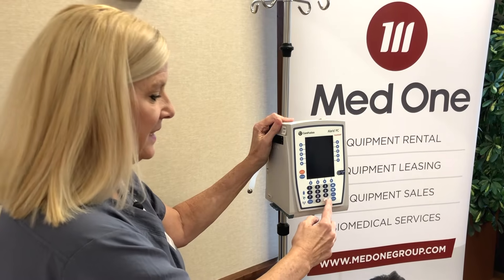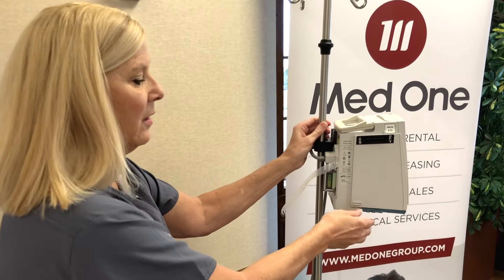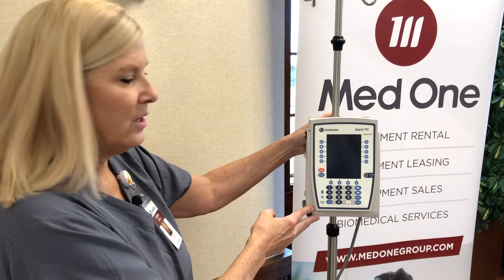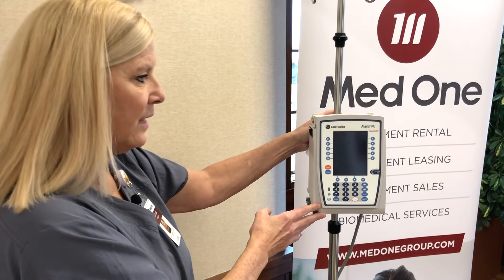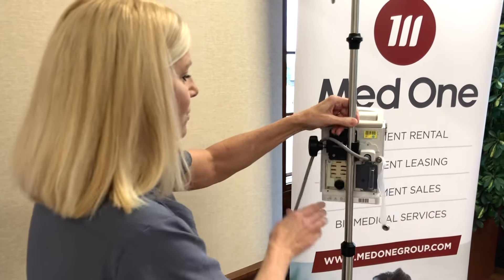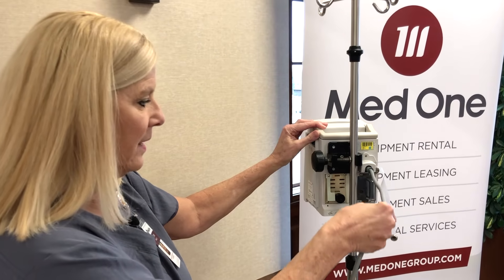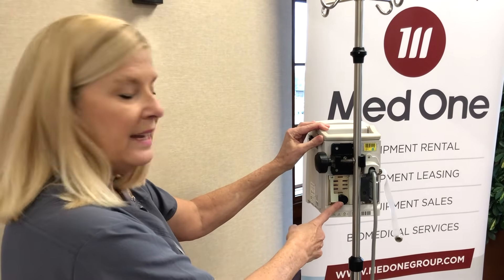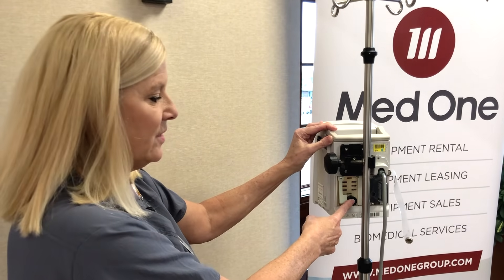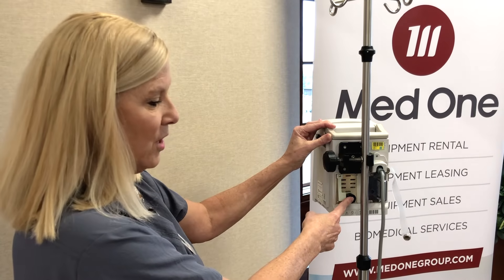Notice that the decimal is highlighted with a red circle. On the sides of the PCU are what we call IUI connectors. This is where the modules of the Alaris system will attach and reattach at 45 degree angles, up to a maximum of four. On the back of the PCU is where your power cord is — this will power up to four devices with only one plug. There's also a black button; if you press and hold it, it will lock out the keypad so that patients or family members cannot access the panel on either the PCU or any of the modules.